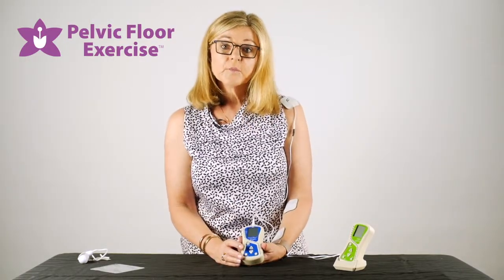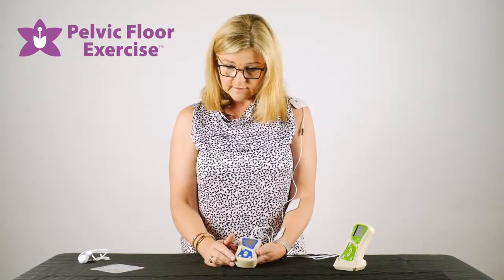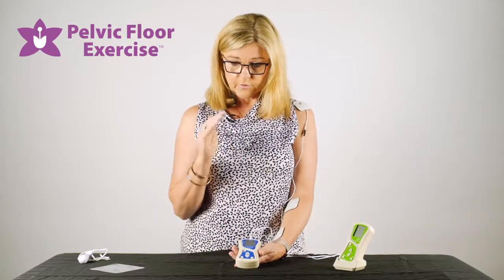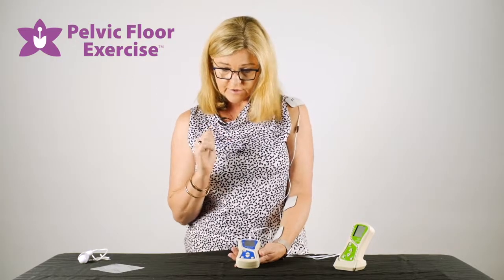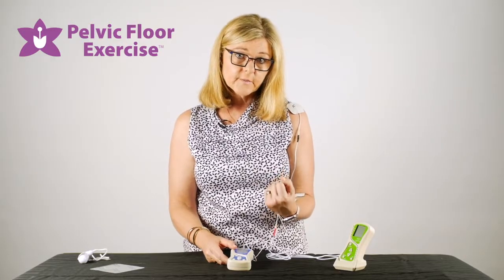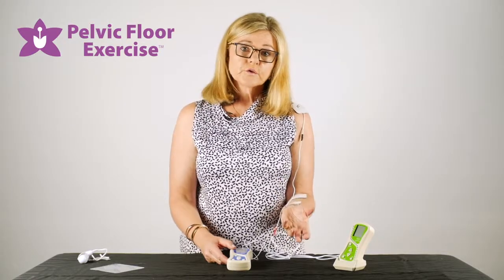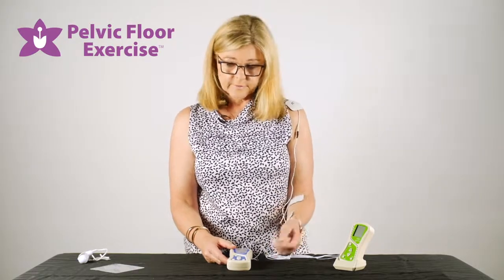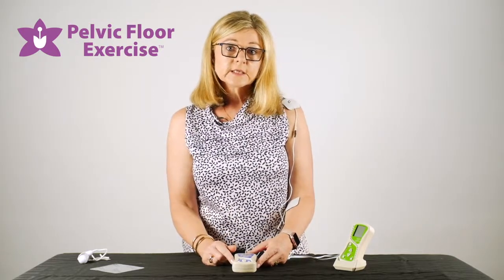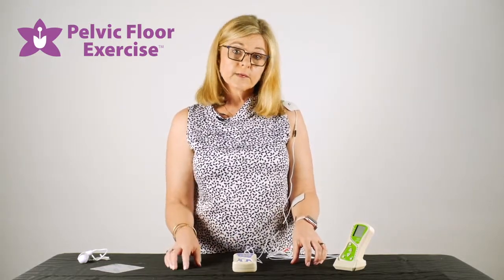At the end of the session, press the SET button and it will bring up different parameters: the work average, the rest average, and the onset of muscle contraction — how quickly the muscle contractions have been coming on and how quickly they rest back. The quicker they come on, the stronger the muscle is developing. Once you press ESCAPE after that, all of that information is cleared, unless you've got your device hooked up to the software on your computer, which will save it for future episodes.